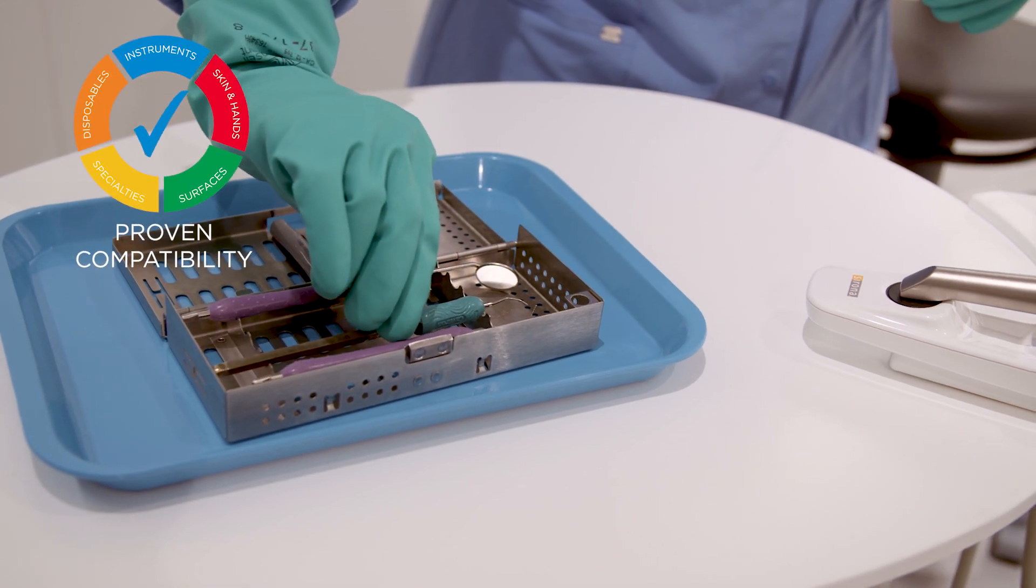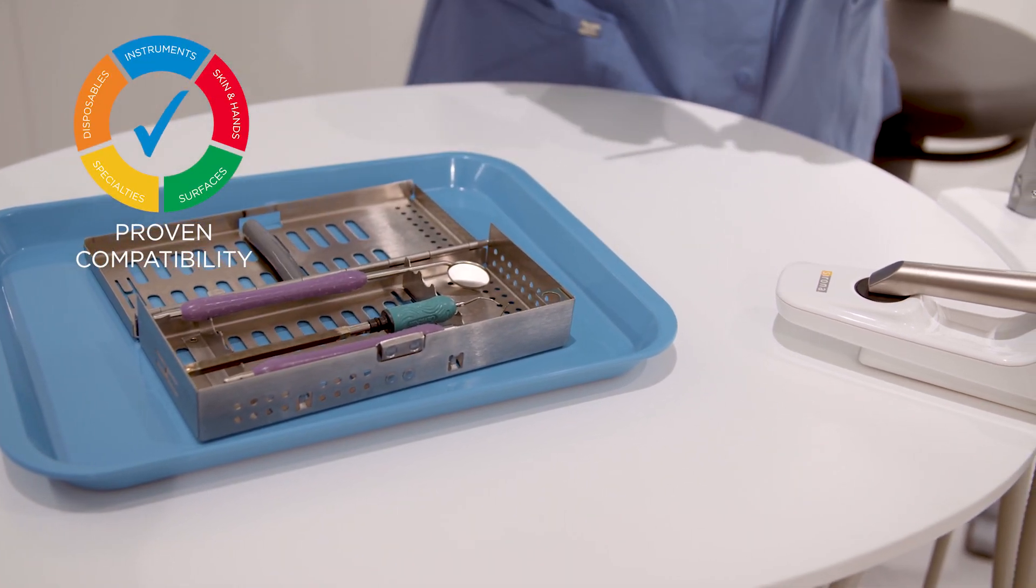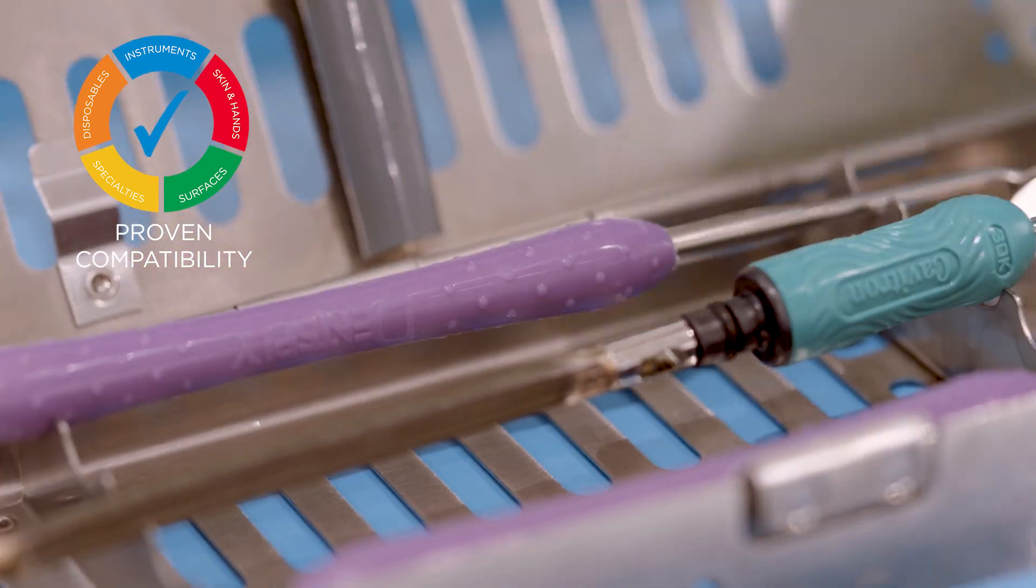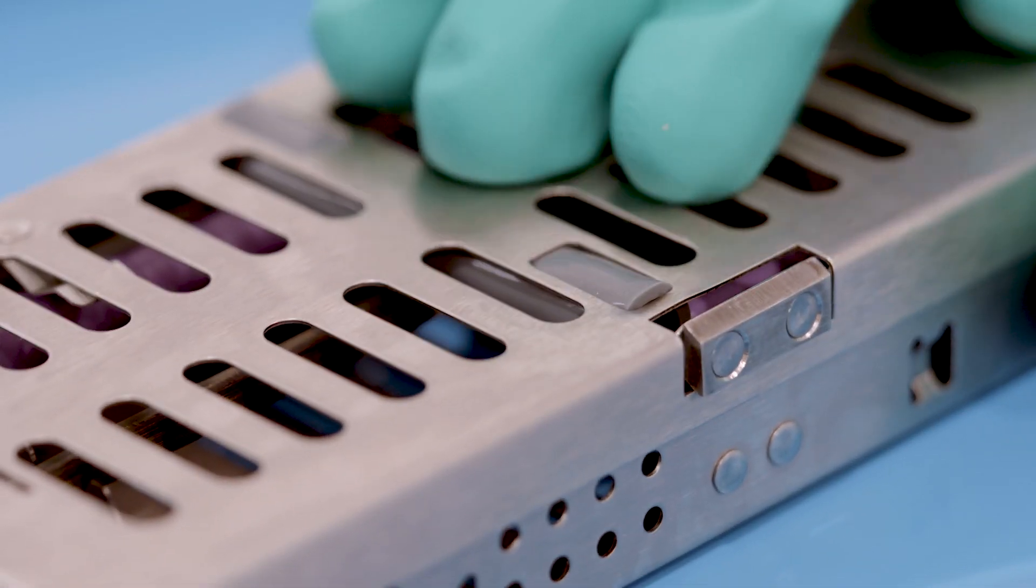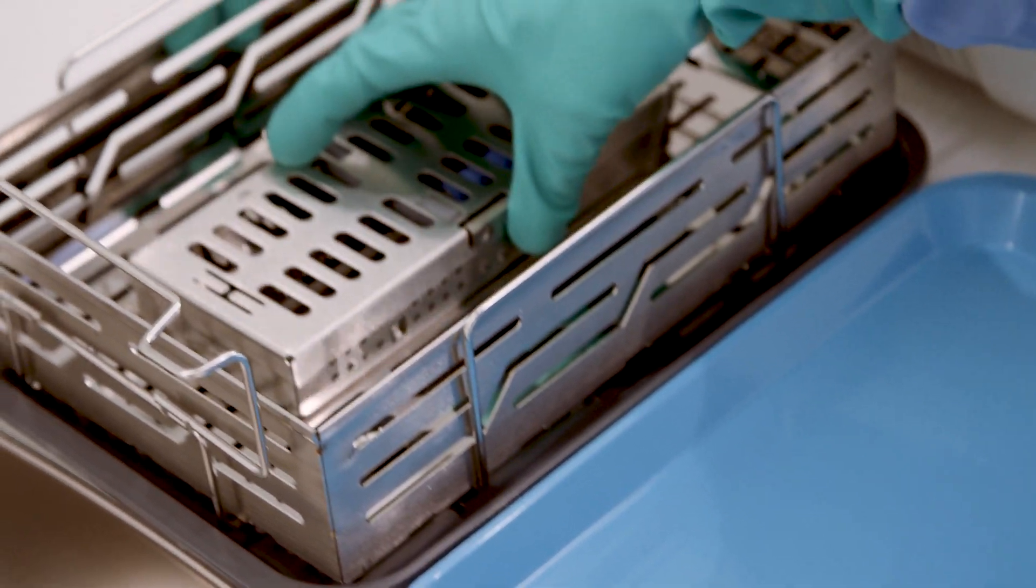Resurge Instrument Cleaning Solution has proven compatibility with most dental instruments, including those made from stainless steel, instrument steel, numerous plastics as well as Cavitron ultrasonic inserts.